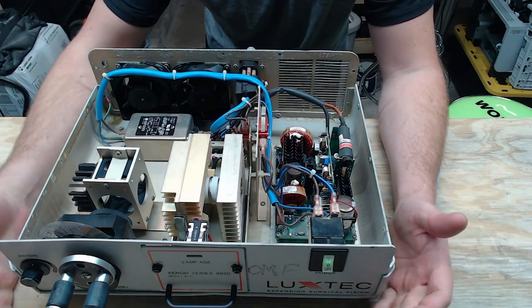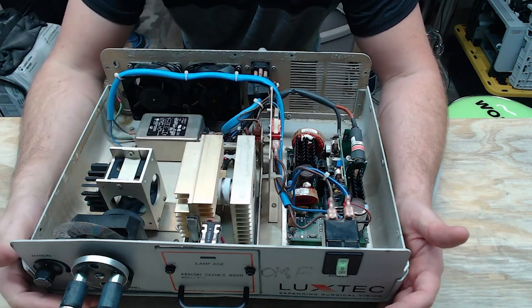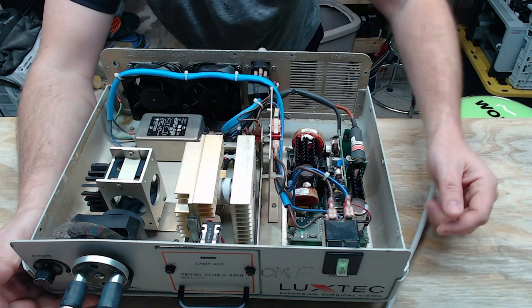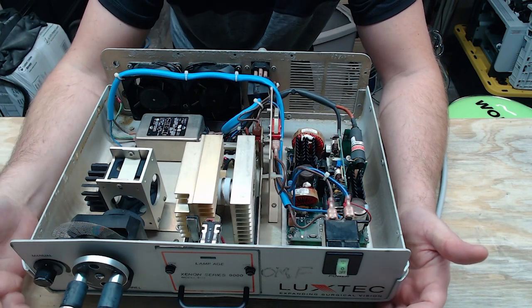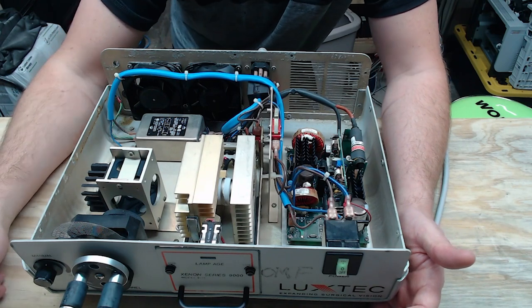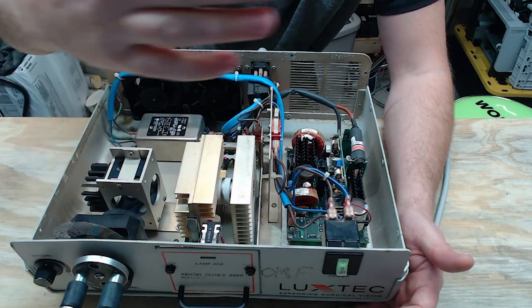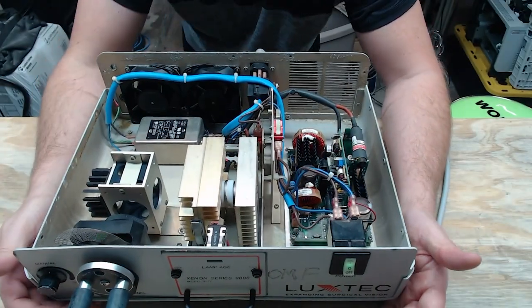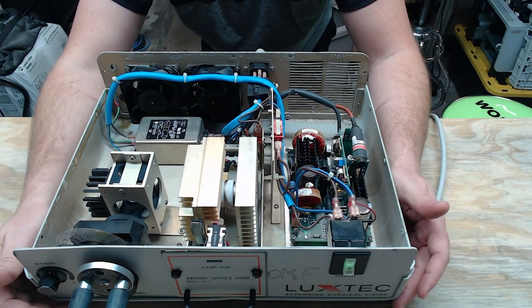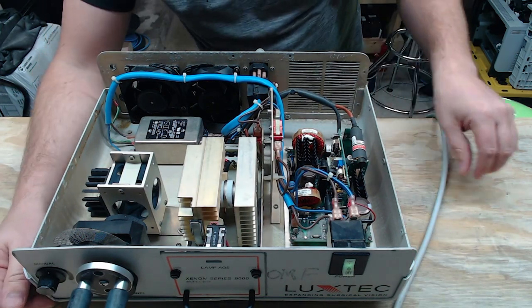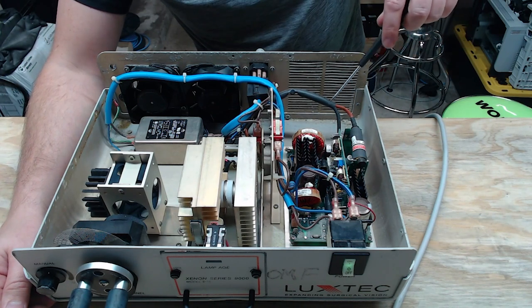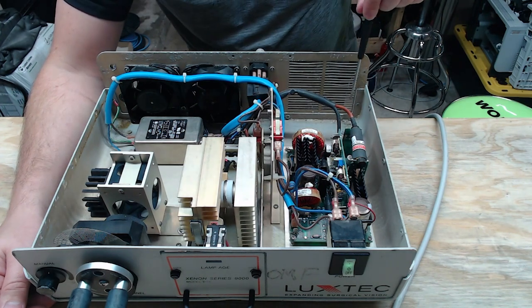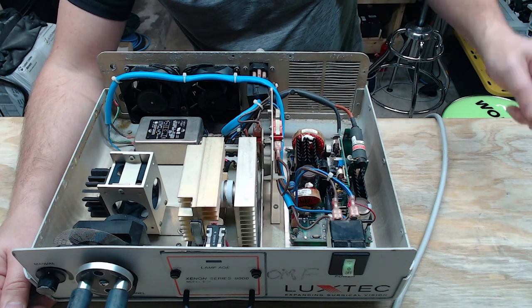So when you do a PM on these guys, I highly recommend you open it up, go ahead and vacuum it out when it's unplugged, and then visually inspect your bulb, guys. You're going to have to visually inspect the bulb to see if it's starting to arc over to the parabolic reflector to make sure that it's not arcing over to the glass, which does happen sometimes. But it's going to give you a visual indicator of the life of your bulb. This is an older analog unit. It doesn't give me any visual indicator saying my bulb is past 500 hours. Over here, I want you guys to take notice that this is the silicone wiring that I mentioned earlier. This is going to be your high voltage that comes into here. So these wires have to be silicone because they need that level of insulation because of the high voltage.